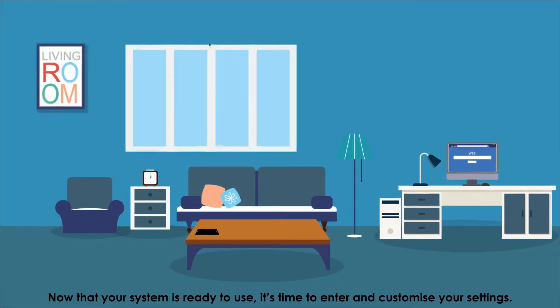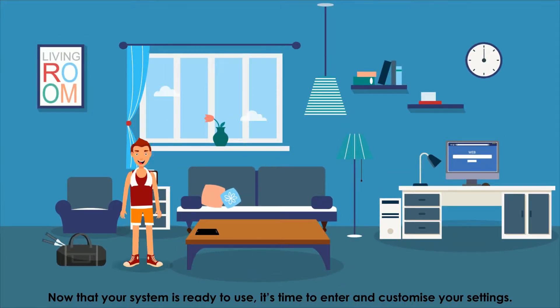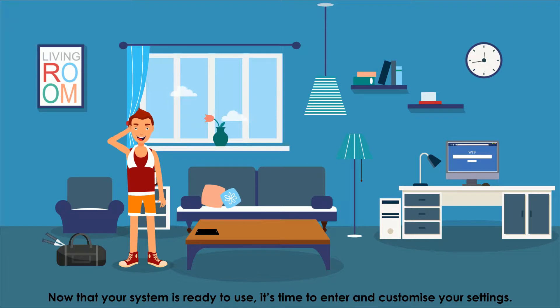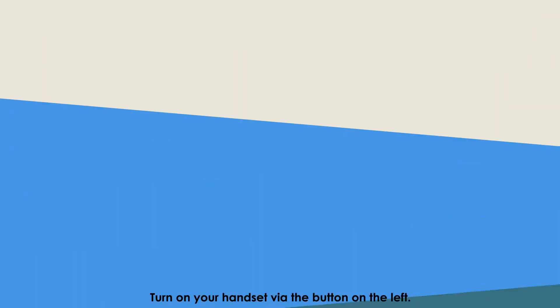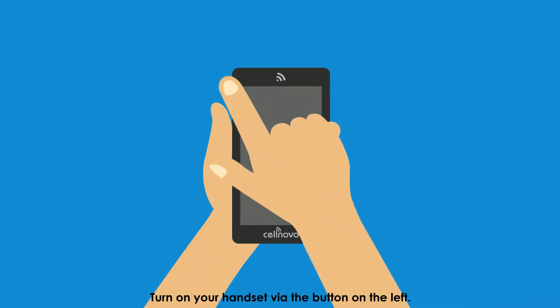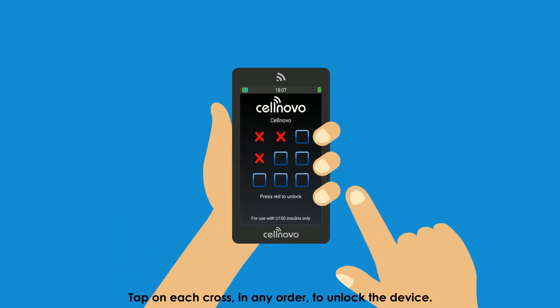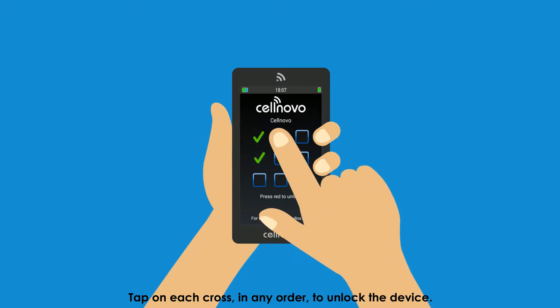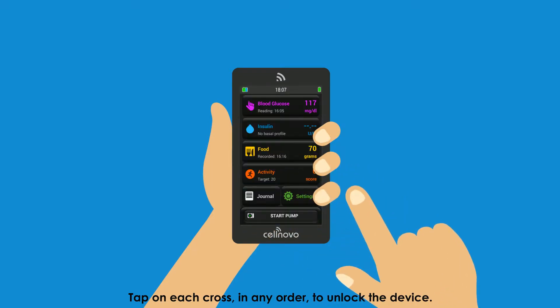Now that your system is ready to use, it's time to enter and customize your settings. Turn on your handset via the button on the left. Tap on each cross in any order to unlock the device.